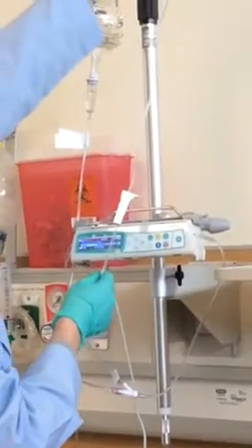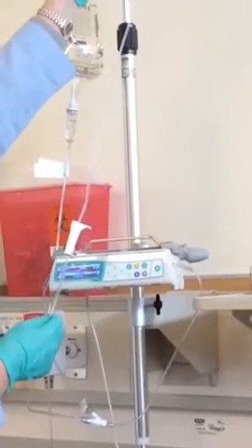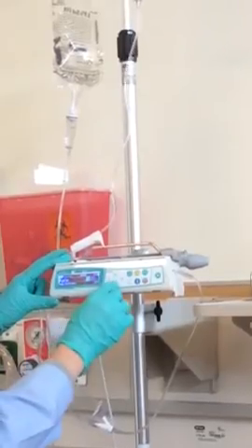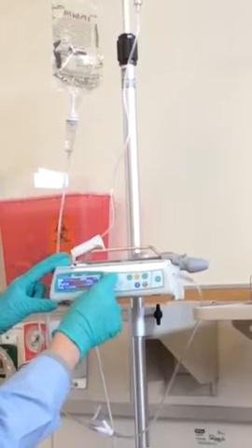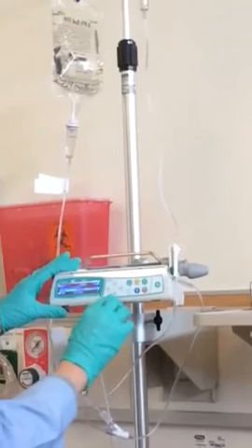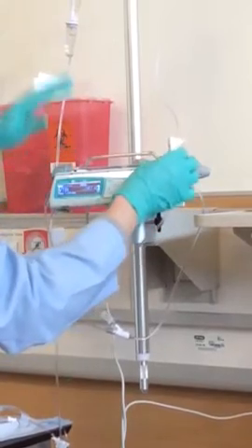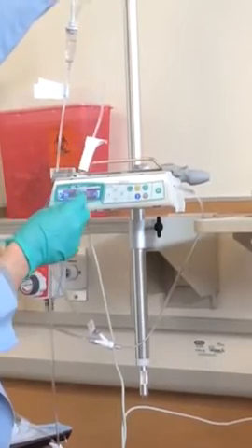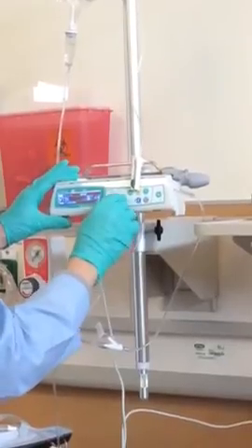So I have 50 milliliters, and let's say this time this needs to run over an hour. So what's that going to be? It's going to be 50 milliliters an hour. So I'm going to change my rate to 50. So the rate is good. I'm going to OK that. And now I'm going to drop down the arrow to volume to be infused. Left arrow over here. I have 50 in the bag. I'm going to add 20 cc's for a total of 70. So I need to reset these numbers and make sure I have it to 70.